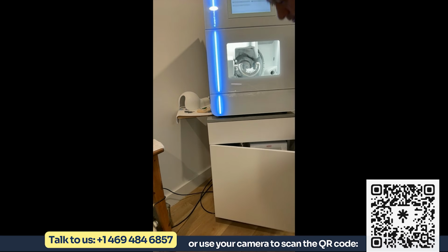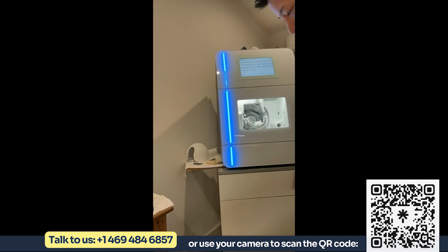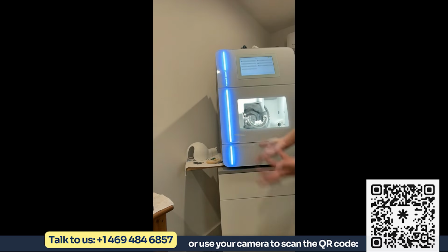Okay, now this cart is optional. You don't have to purchase the cart, but it is optional if you don't have counter space. If you want to put the mill on top of a counter, drill a couple holes, and put the suction unit and water tank underneath, then you can do that and save some money on the cart. Now, having this 5-gallon water tank, if you're milling glass blocks, you might have to change your water maybe every 6 months to a year. So very low maintenance, built for higher production.